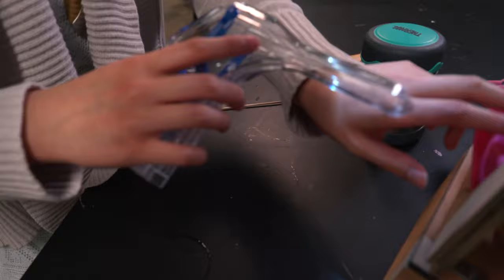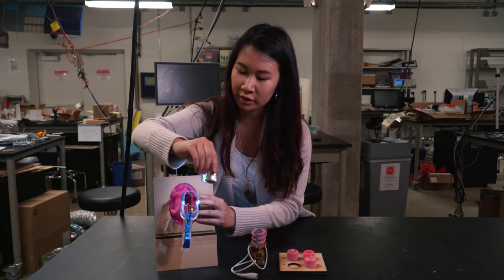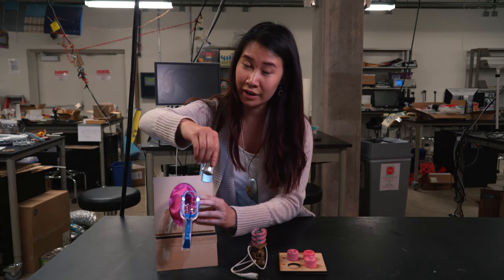This gives you a clear shot of the cervix, and then you can adjust the light so you can see right in there. This is just the general setup for all the different procedures that this model teaches.